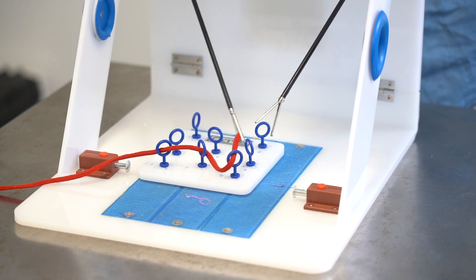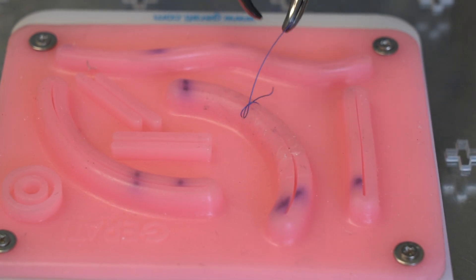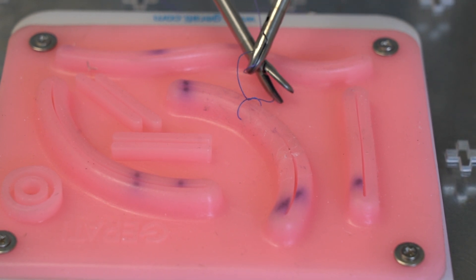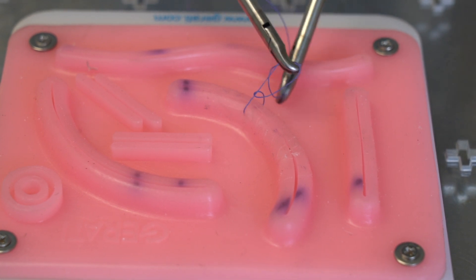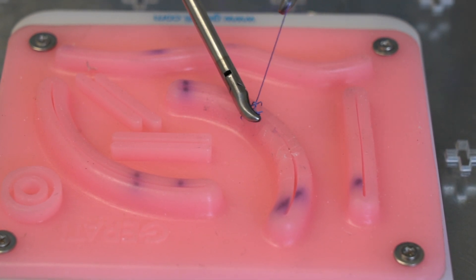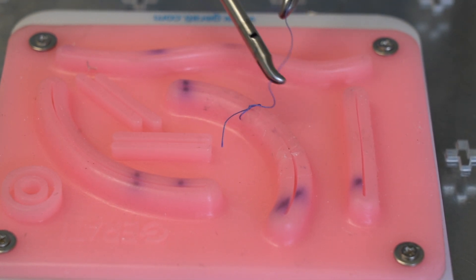But with practice you can see that we can get some pretty significant skill performing things like knot tying and even suturing, although these are very advanced procedures that will take you a while to get comfortable with doing. There are lots of videos on YouTube that can be really helpful in seeing what's possible with laparoscopic surgery as well as practice techniques in order to improve your skills.